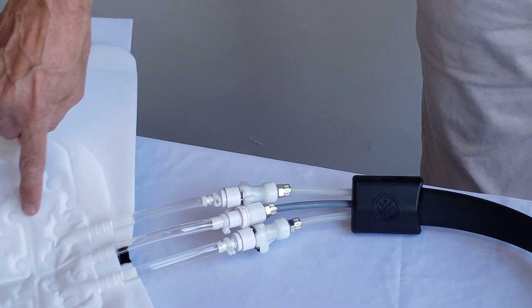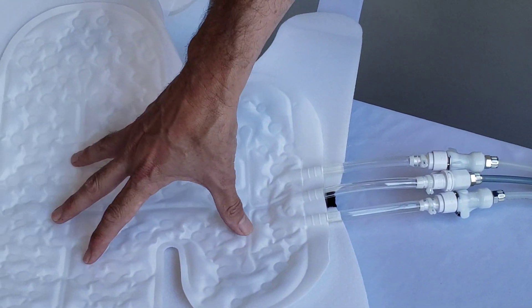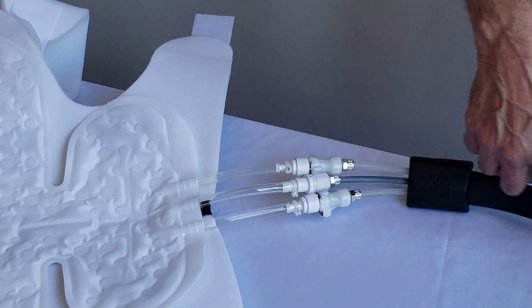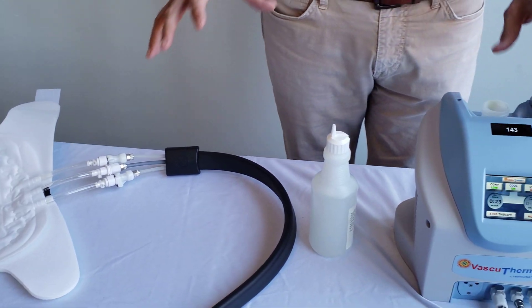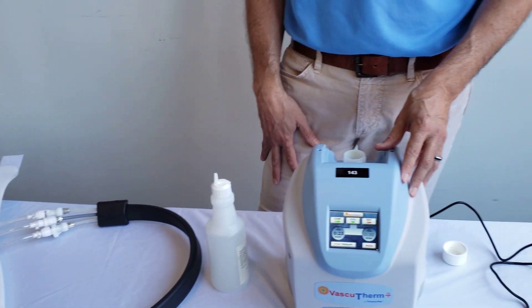This is your inflow — it's going to work its way through the pad. You know it's working when it creates these dimples, and then you have a nice outflow. So it's going to have an inflow and an outflow, creates the dimples, and you know you've got a good flow.